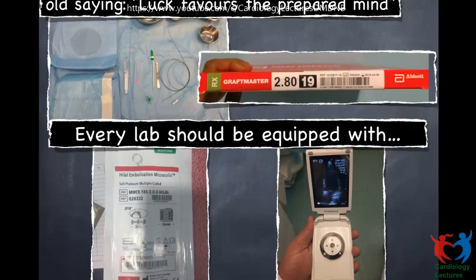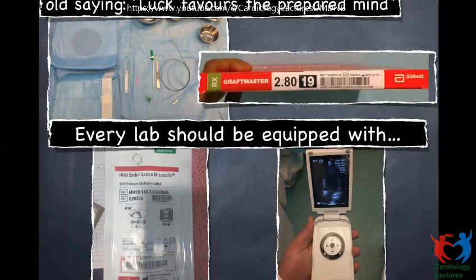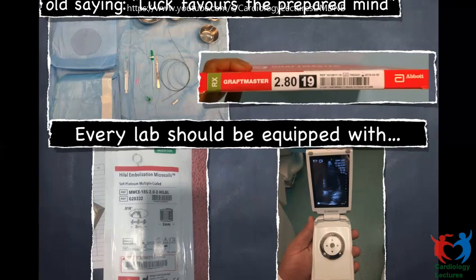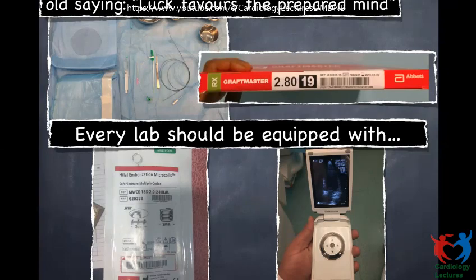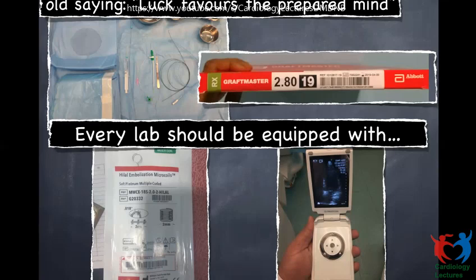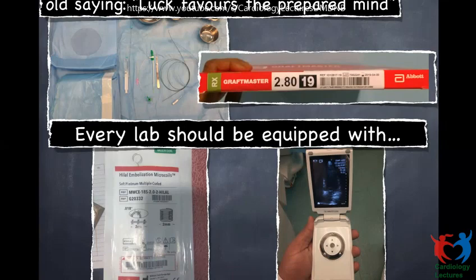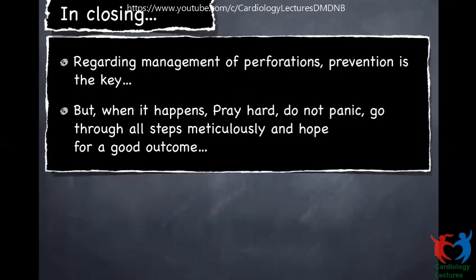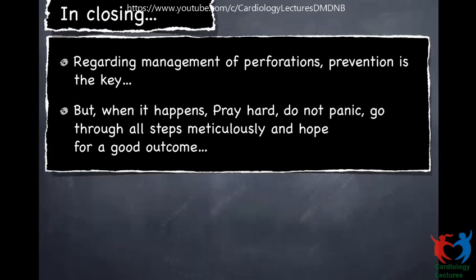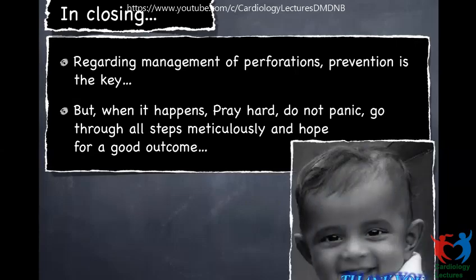Luck favors the prepared mind. Every cath lab should have a pericardial aspiration tray ready. You need Graftmaster of all sizes available. You need Cook microembolization coils. And you need a portable echo machine that powers on in 10 seconds. In closing, regarding management of perforations: prevention is the key. But when it happens, pray hard, do not panic, go through all the steps meticulously, and hope for a good outcome. Thank you.